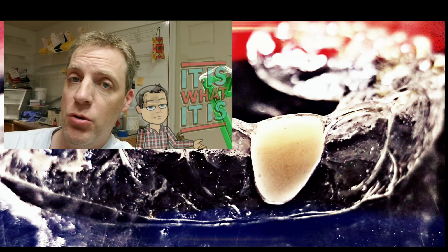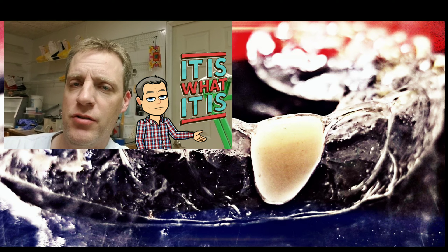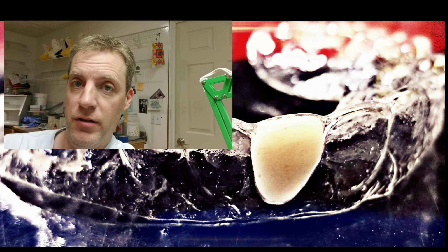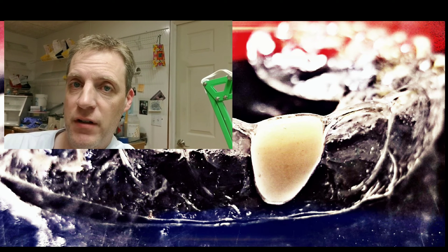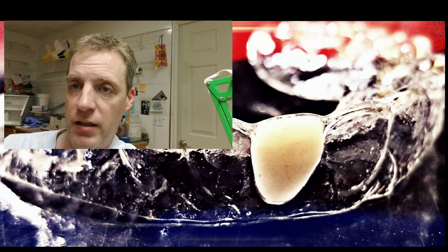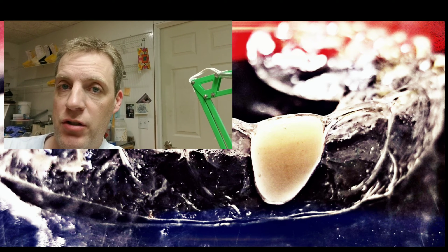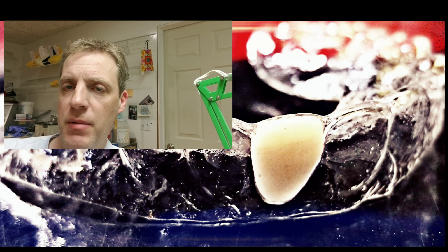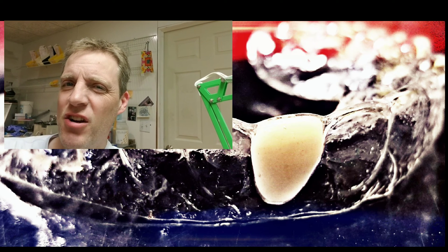But there is no translucency in this tooth at all. Because when you're working with tooth shade acrylic, it's just a solid color acrylic. Was it hard enough? Yes — I felt it was hard, I was able to drill on it. If you took a Vita shade guide or a Bioform shade guide and looked at A1 next to my tooth, the color is just a touch off.